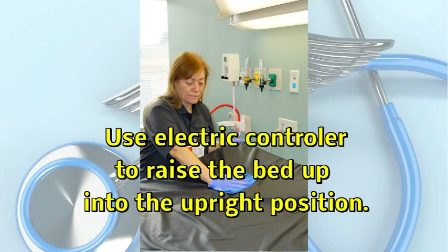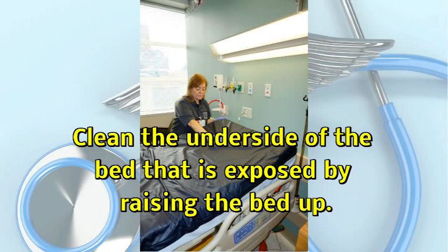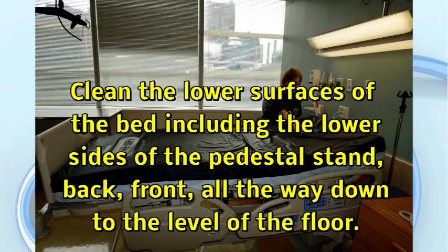Now, use the electric controller to raise the bed up into an upright position. Begin cleaning the underside of the bed that is exposed by raising the bed up. Thoroughly clean surfaces in all cracks and crevices. Moving downward, clean the lower surfaces of the bed, including the lower sides of the pedestal stand and the back and front all the way down to the level of the floor.